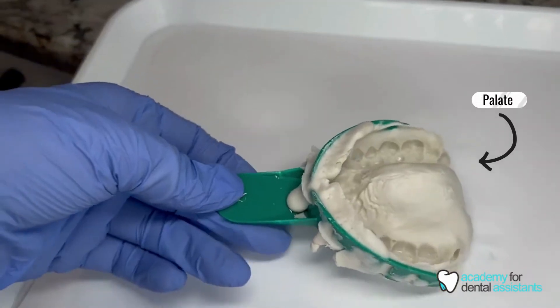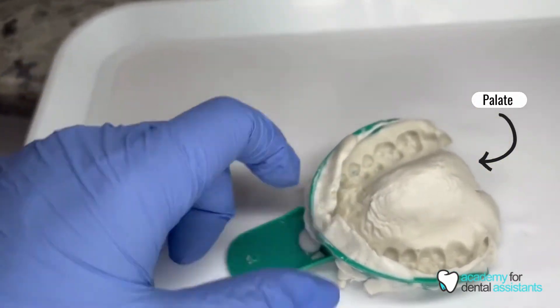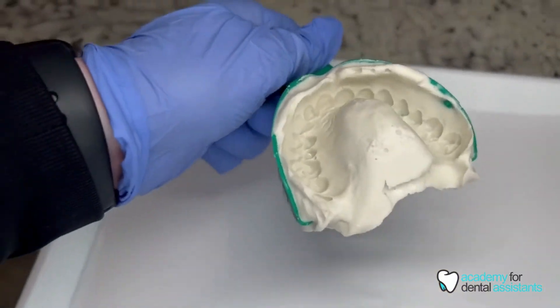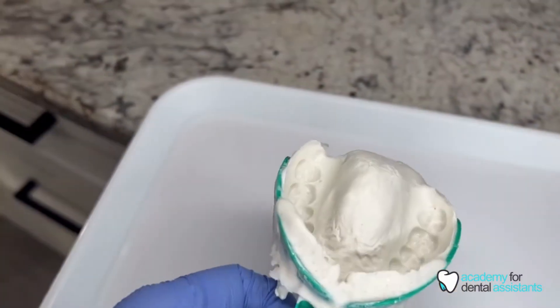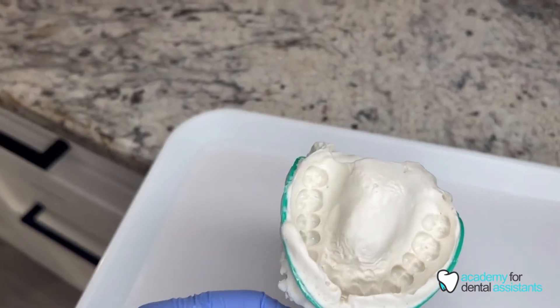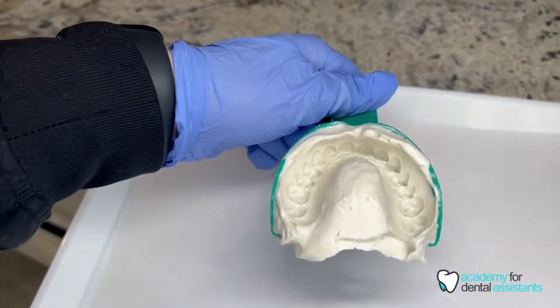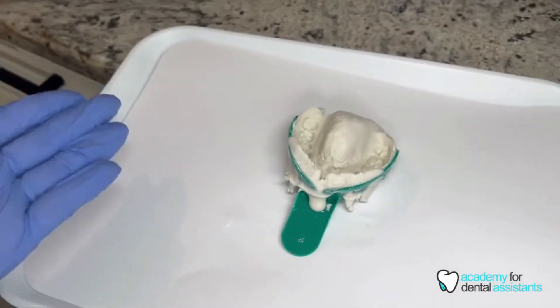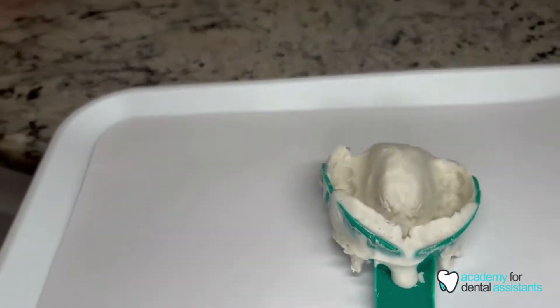It's also important that you have a good impression of the palate. As you can see, there is a lot of dimension in here that is going to replicate exactly what this patient's palate looks like. It's going to make it a better impression for the dentist when they do take the opposing impression.